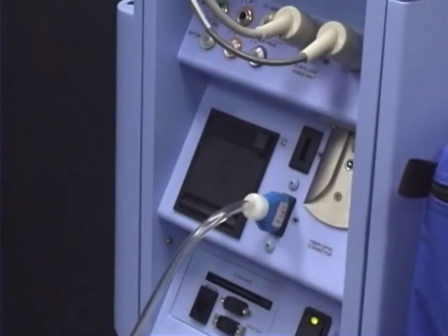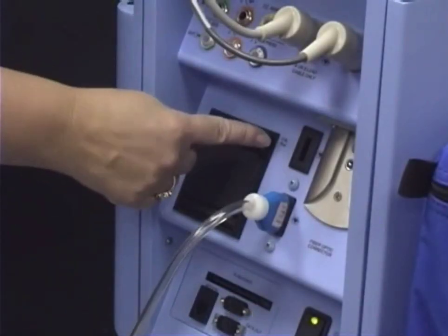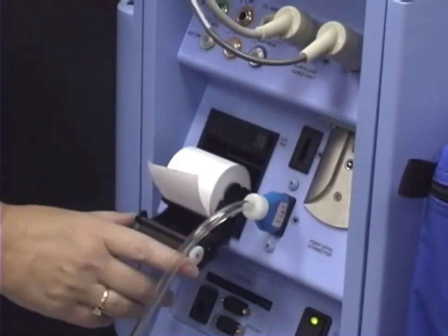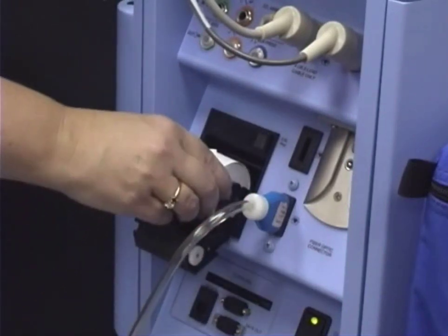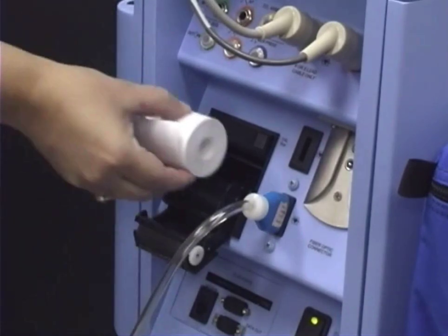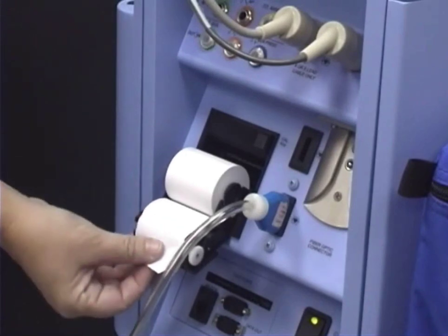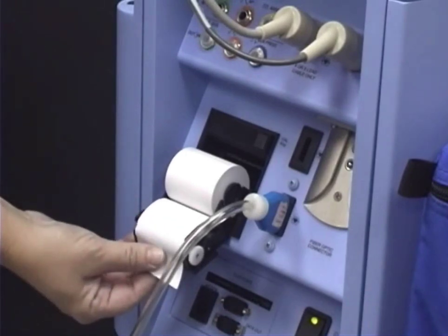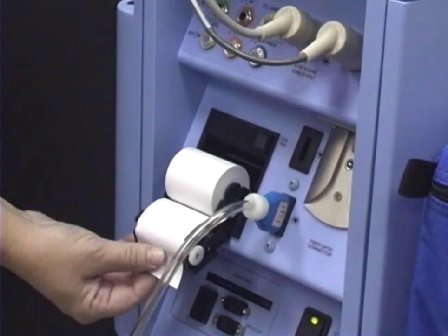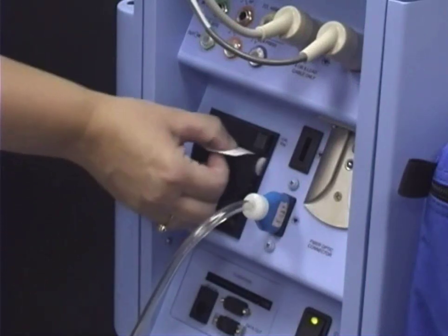To change the paper on the strip recorder, push in on the latch at the top right-hand side of the recorder to open the paper compartment. Gently remove the old roll. Place the new roll of paper in the compartment. The paper should be inserted so that as you unroll the paper, the print surface — in other words, the shiny side — is visible as it is being unrolled. Close the door.